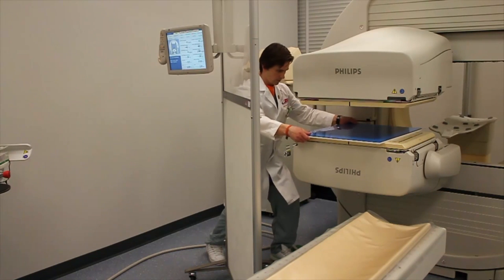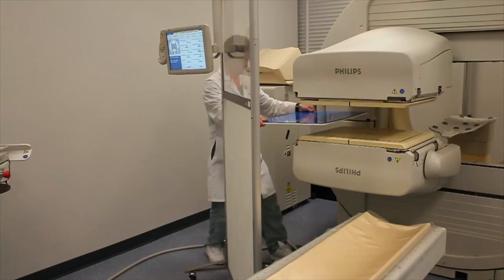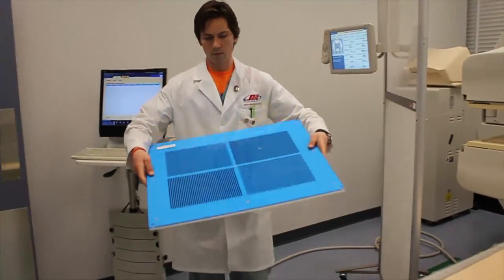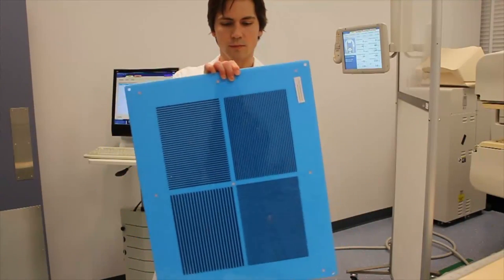Use additional care when removing the bar phantom from in between the detectors. Lift off the detector surface as not to scratch or cause any other damage.